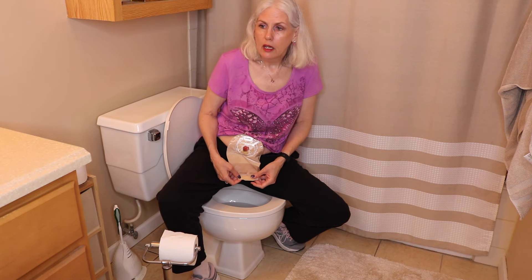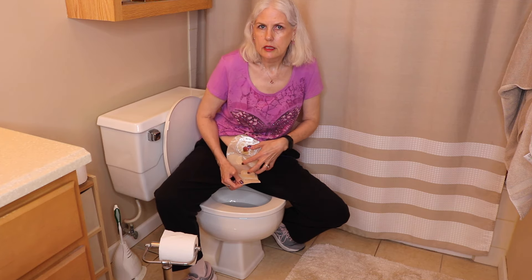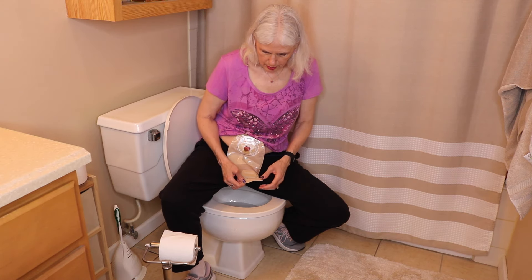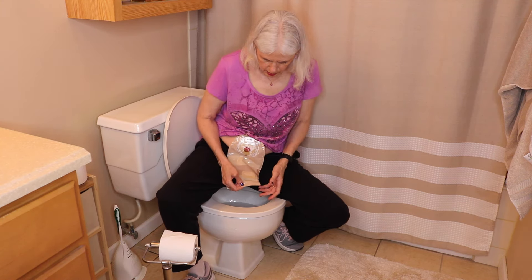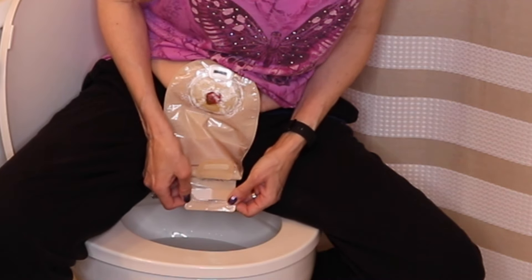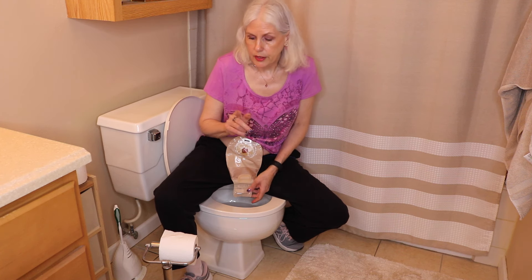You unroll your bag and hold on to the sides of it. Depending on the consistency of your output — if you have liquidy output you don't want it spewing all over the floor, and if it's a thicker output it should nicely stay in the bag. When you get about this far, hold on to it, get it in the toilet, undo that last one, then squeeze open the sides and let the contents pour out.